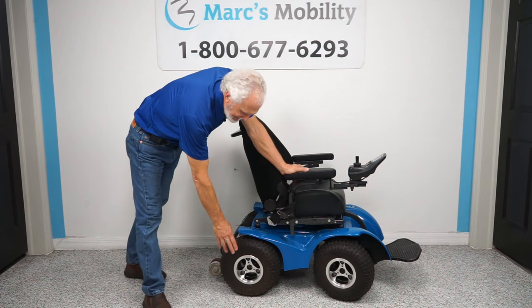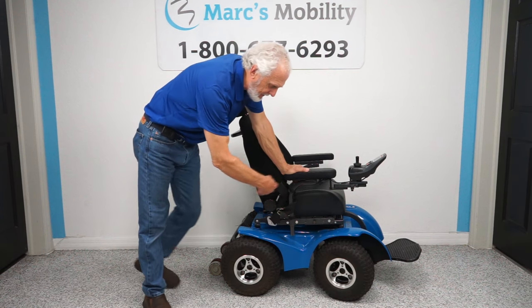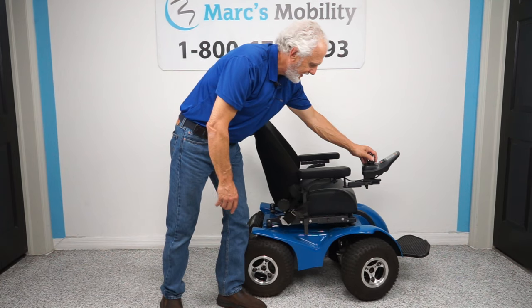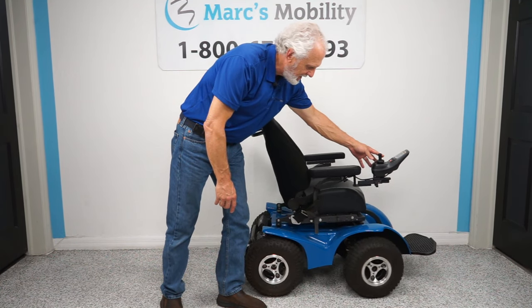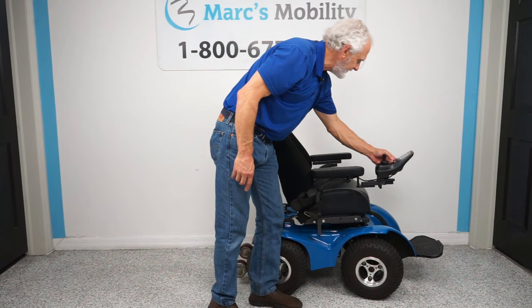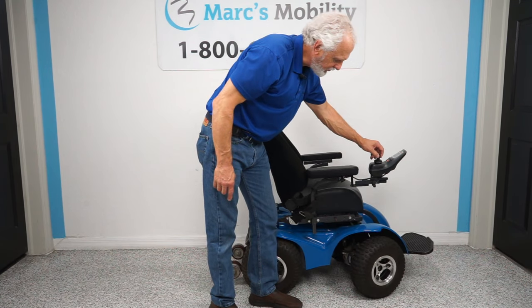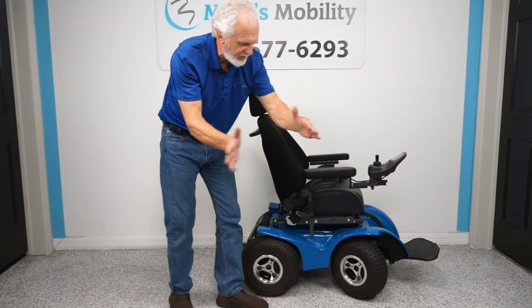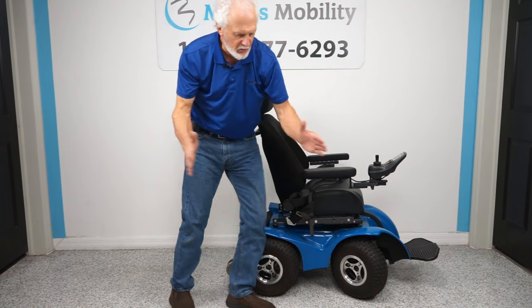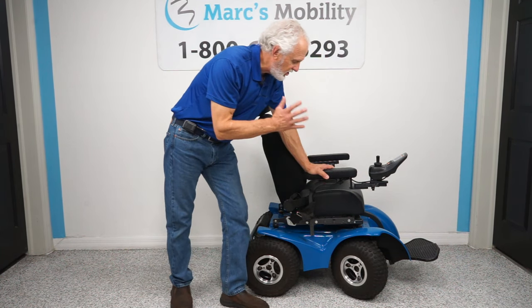It has large 13-inch low-pressure tires all the way around. The front wheels will turn with the joystick — you can see the front wheels turning as you steer. This is one of the only chairs like this where the wheels actually turn. On some four-by-four chairs the wheels don't turn, they just slide sideways and it wears out the tires.